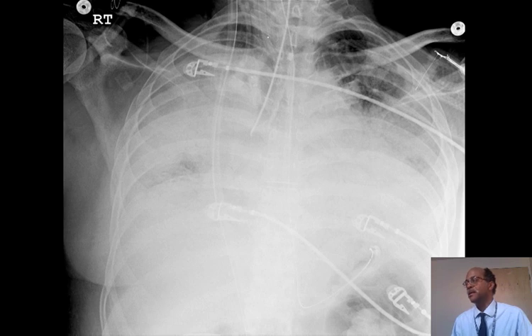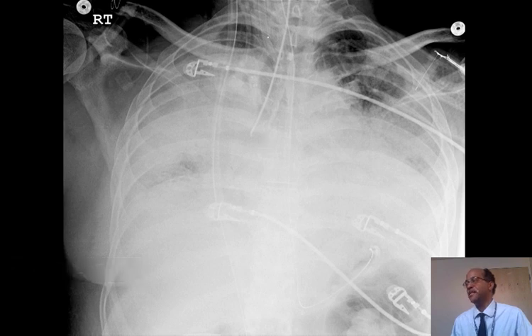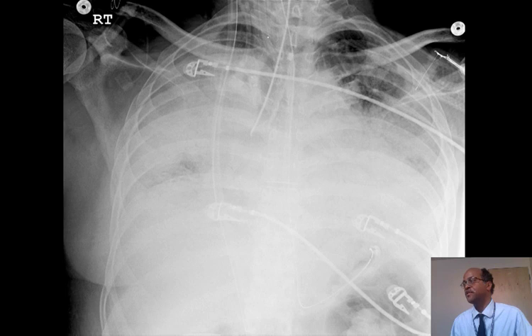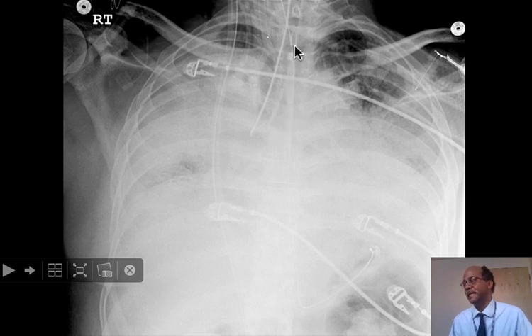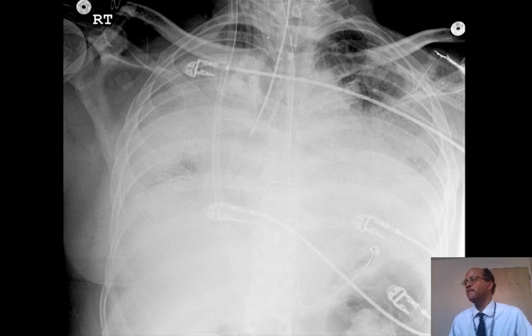Occasionally this results in collapse of the left lung. The tube tends to slip into the right main stem bronchus because it's more vertically oriented than the bronchus on the left. In this patient, you can see that it hasn't resulted in collapse — there's no shift of the mediastinum — but this tube does need to be repositioned. We can measure the distance from the tip of the tube to a satisfactory placement a few centimeters above the carina, up to about the thoracic inlet.